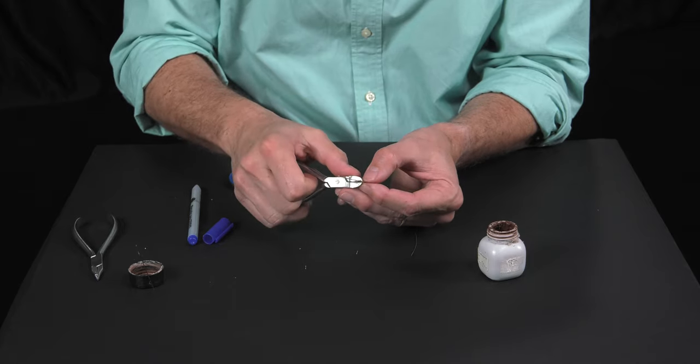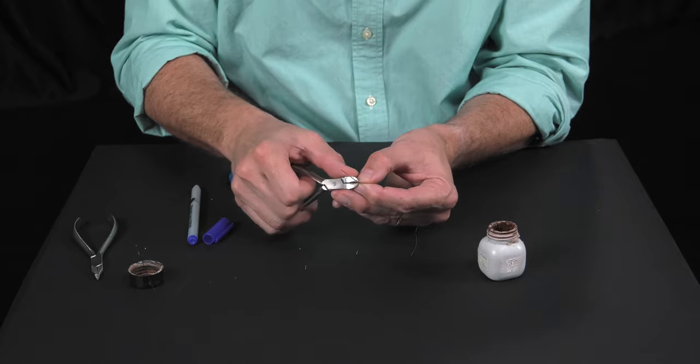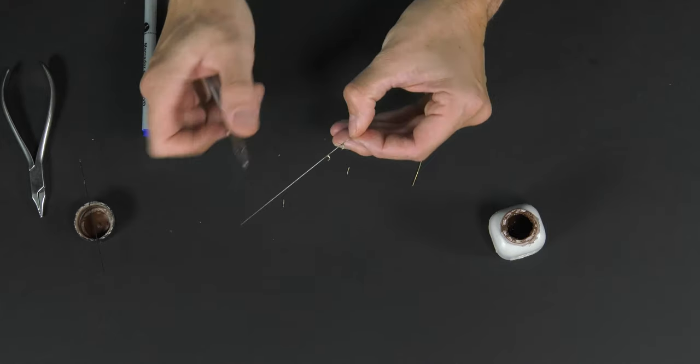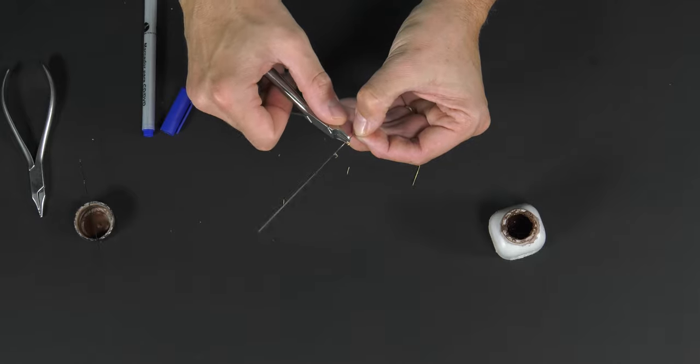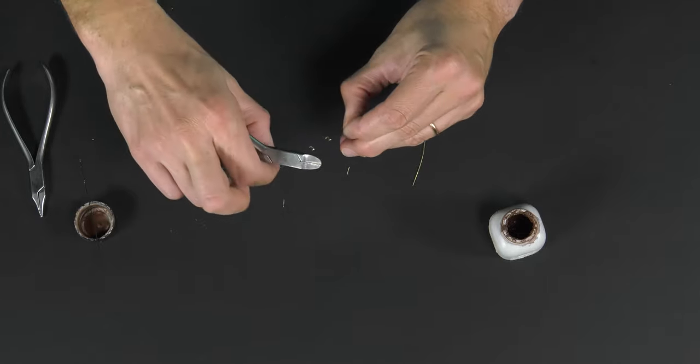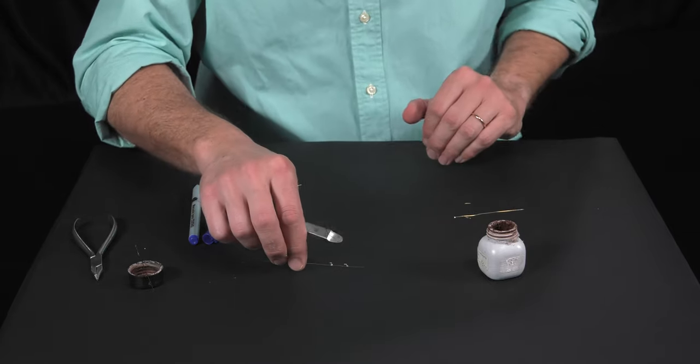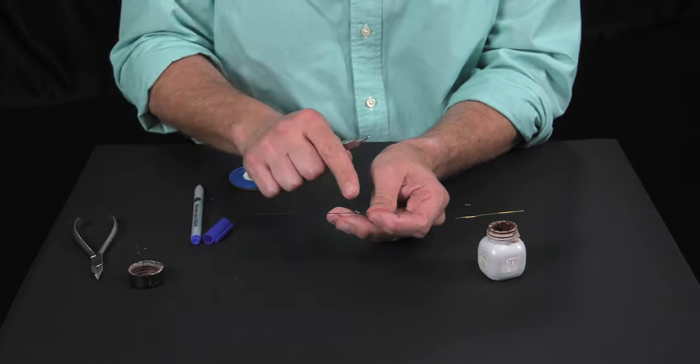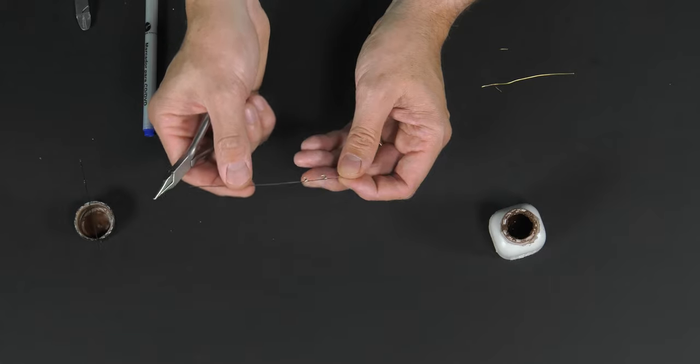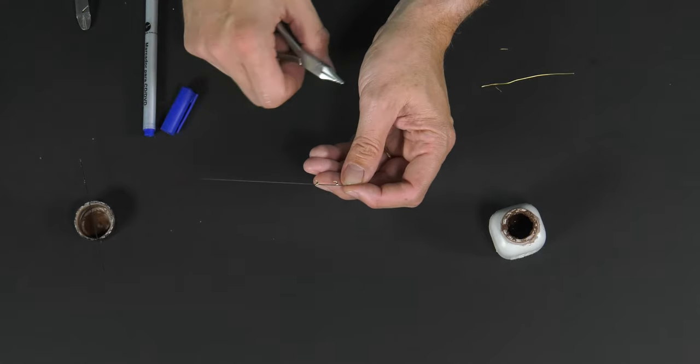This method, which is the direct method, presupposes that we have a certain manual skill and that we're capable of correctly stabilizing both wires, the brass and the base wire, when performing the soldering. Now we have our two hooks and we can clearly orient them as needed. Working with brass wire makes this fairly simple.